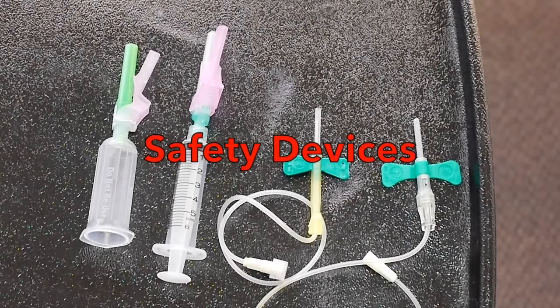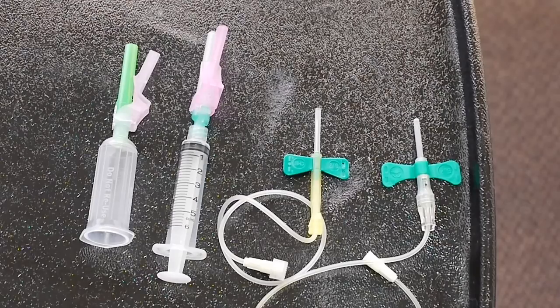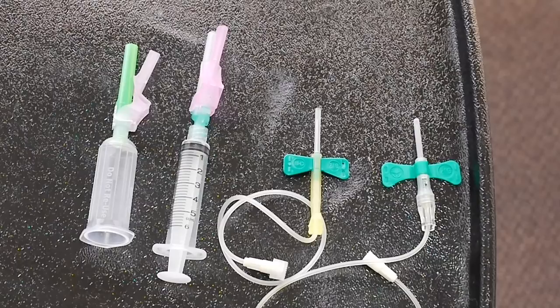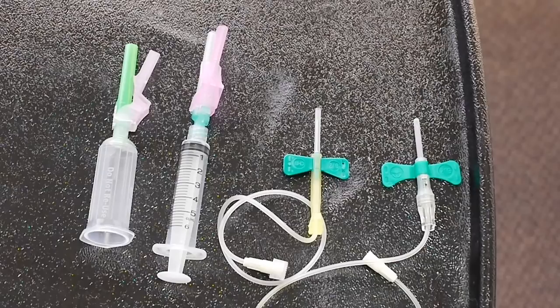So today we're going to be talking about what we call engineering controls, our safety devices. Engineering controls are things that are manufactured to protect the user of the device from being either stuck with a needle or some other kind of danger. Now, we're going to be talking about safety devices today on the needles.